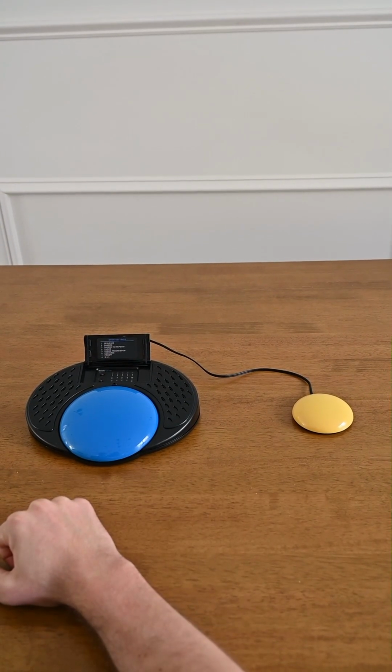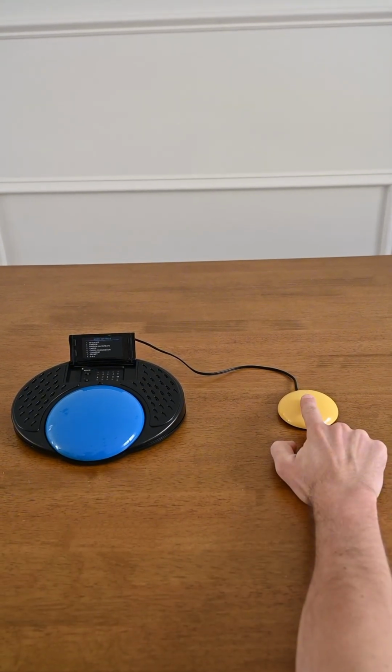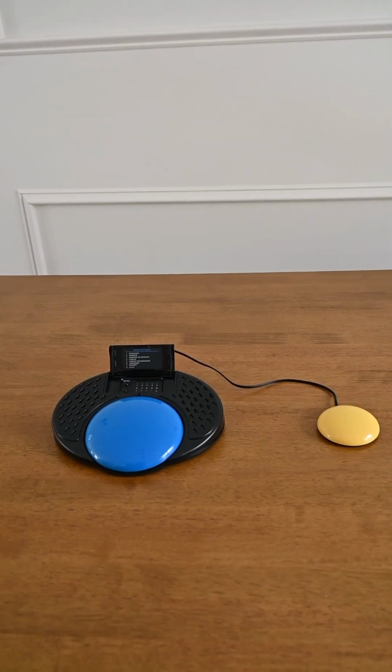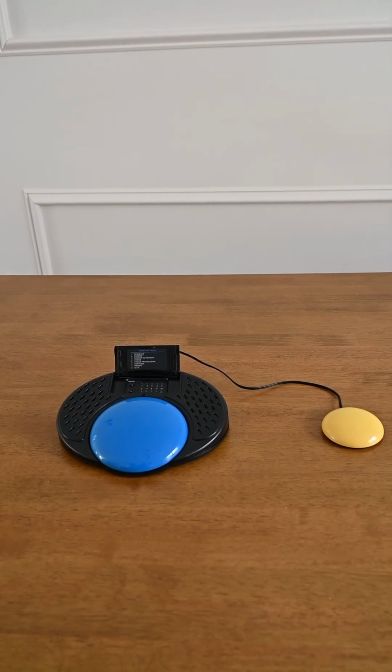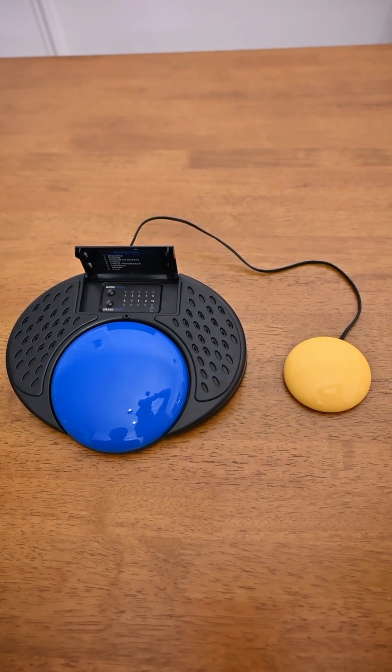Hi Madison, what's your favourite food? Nothing happens until Madison speaks. My favorite food is ice cream. So that's a great mode for teaching turn taking. The next mode we're looking at is mode number 7, and that is prompt mode.